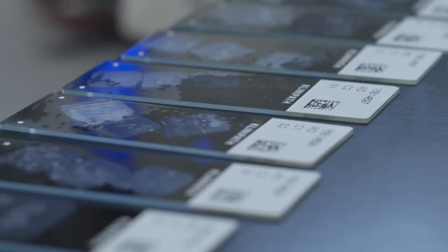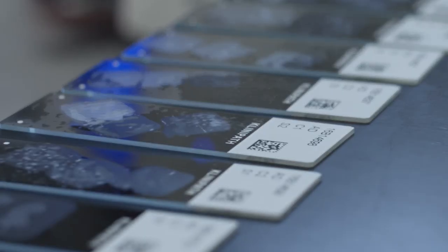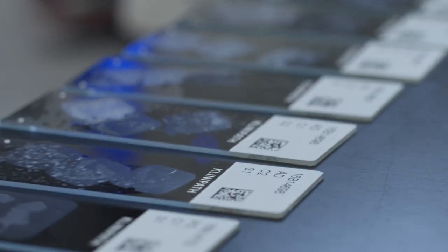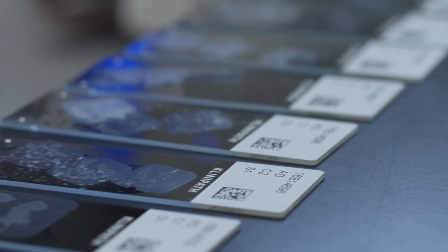Since digital pathology, we sleep better as patient safety has improved a lot. This is because of the unique barcode where the request form is always connected to the right slides through this barcode.